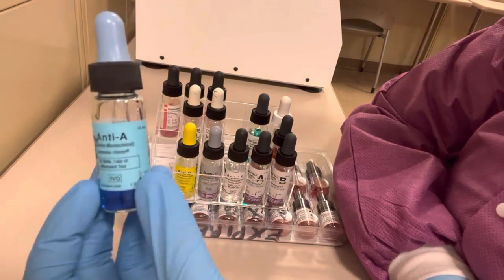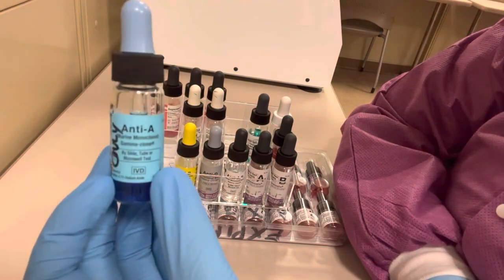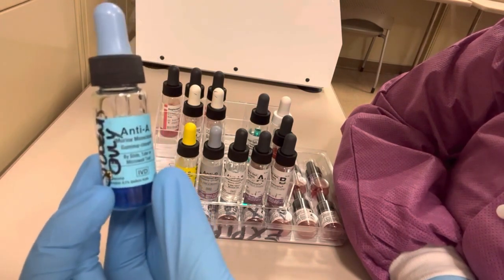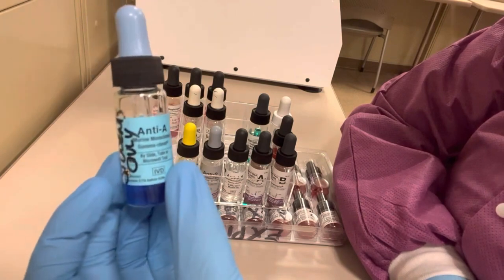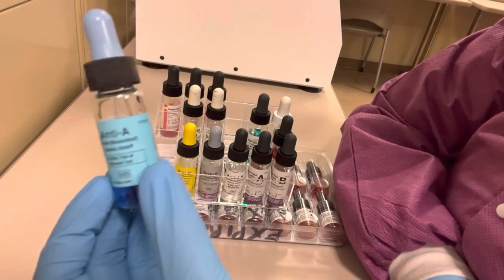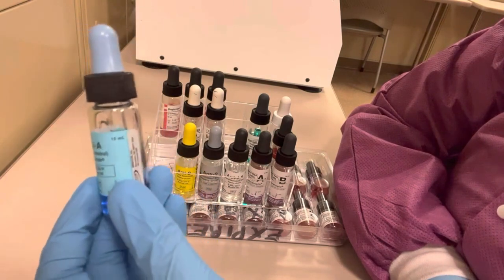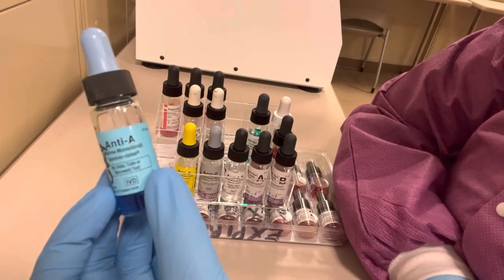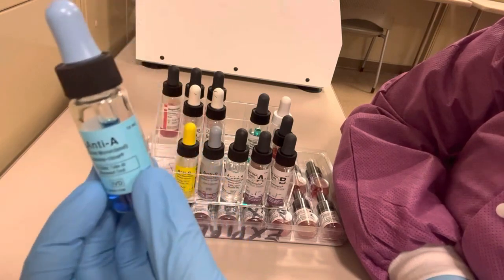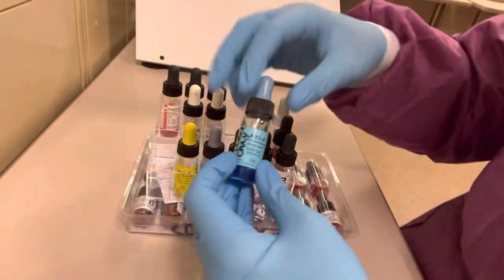Even though anti-A is blue, that does not mean you should skip reading the label. You definitely want to read the label every single time you pick up a blood bank reagent, even if it's blue in color, just for patient safety reasons.